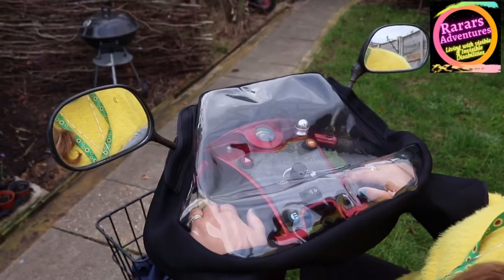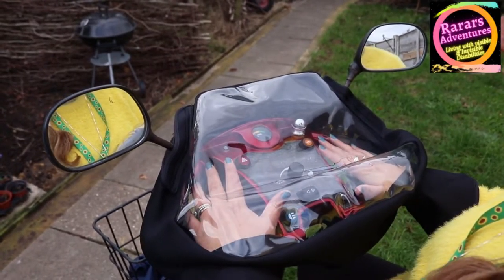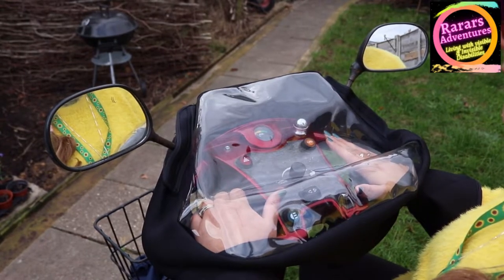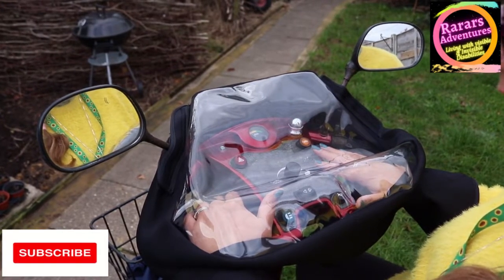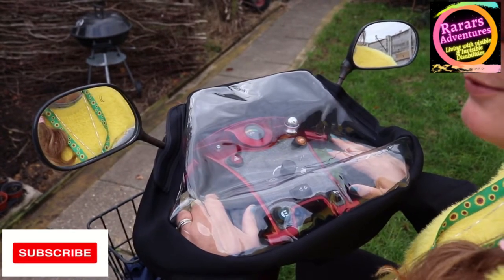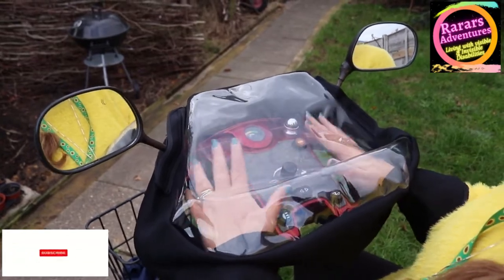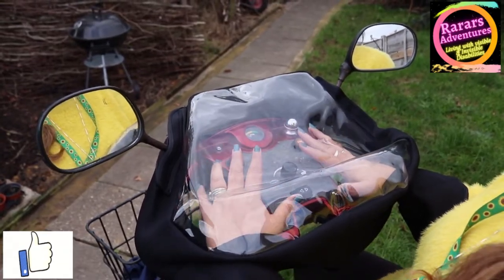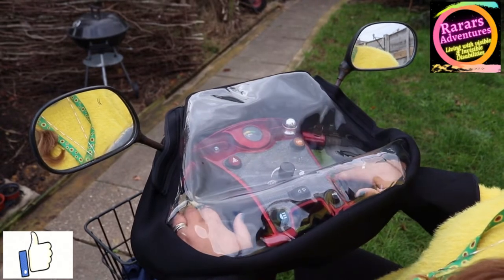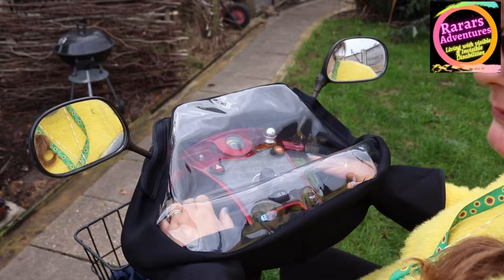Your hands are now protected from all weathers — rain, snow, condensation, you name it. As you can see, you can still see everything you need: your hazard lights, speed control, indicators, lights, and horn. You still have access to your paddles to go forward or reverse, and nothing is blocking your view.